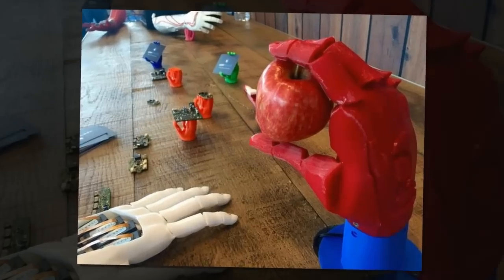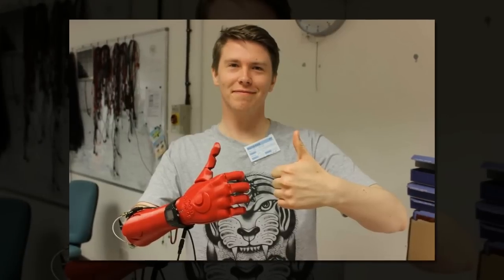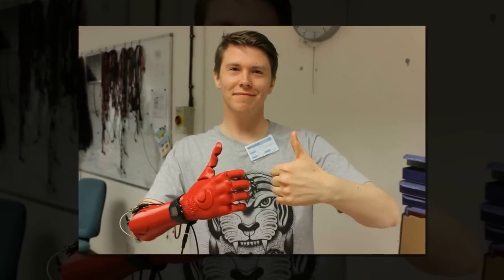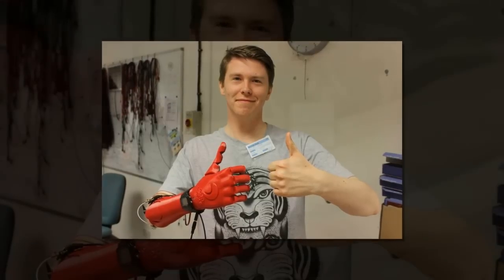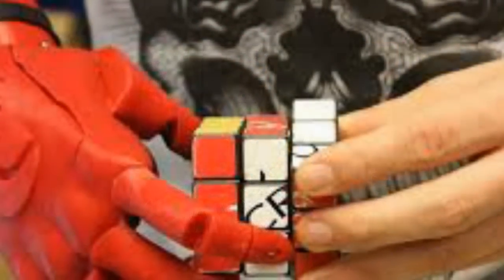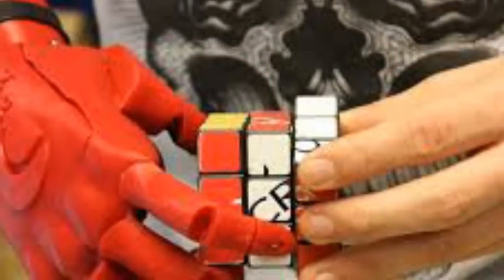Open Bionics from Bristol, England, and its dexterous design, originally funded on Indiegogo, is so streamlined it has just won the James Dyson Award in the UK, putting it in the international final for the student design competition.